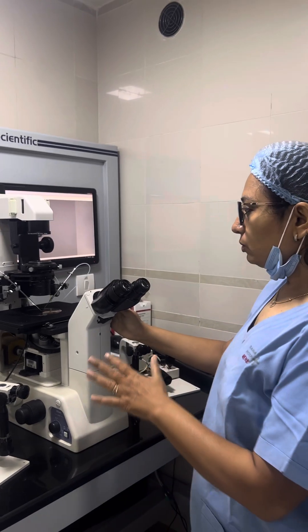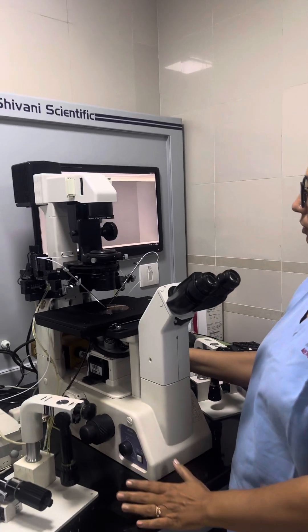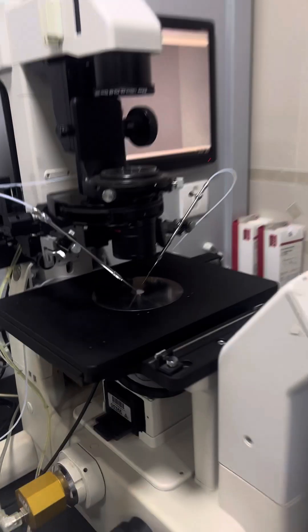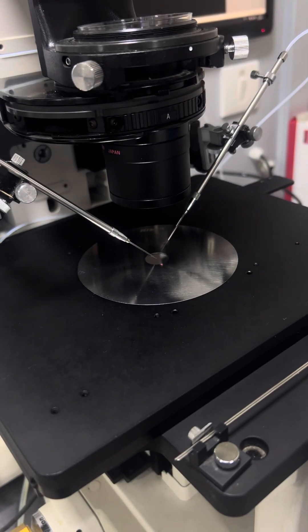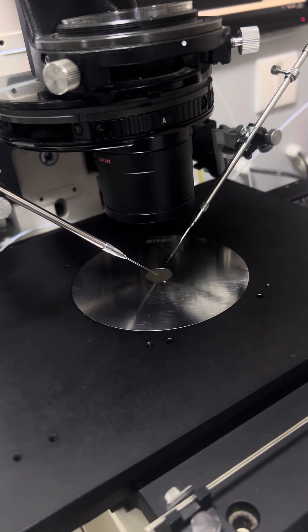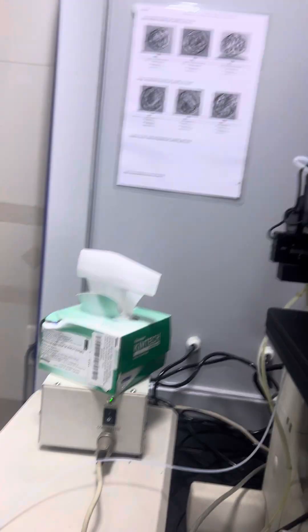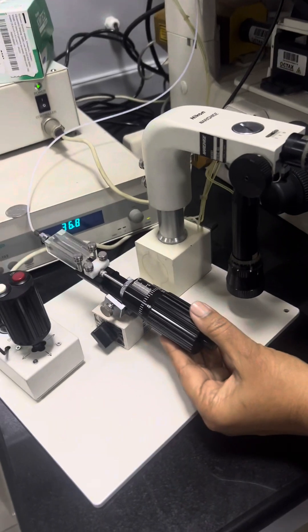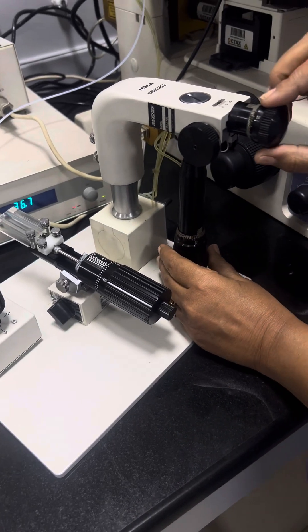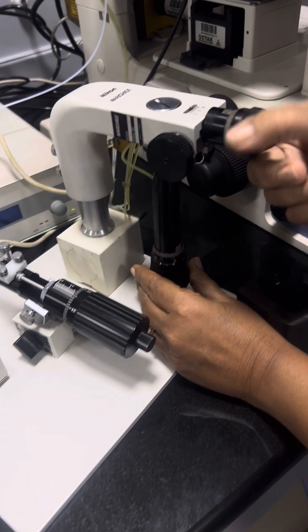First tip is you have to make sure that your microscope is at 4x which is the smallest length in your microscope. You should set 4x and then you should put all the fine adjustments on neutral that is on 5.